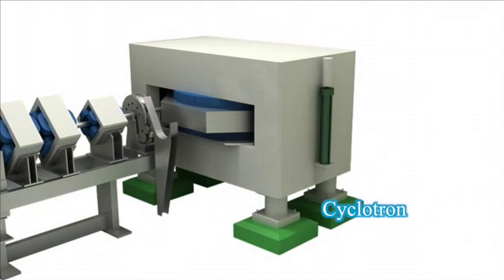First, protons are accelerated to the energy level of 30 mega electron volts and to about 25% of the speed of light by the cyclotron, which is a circular accelerator dedicated to cancer treatment.